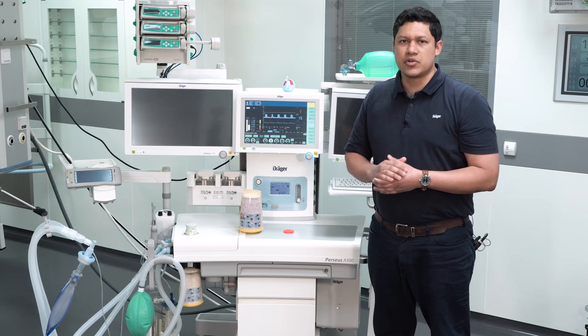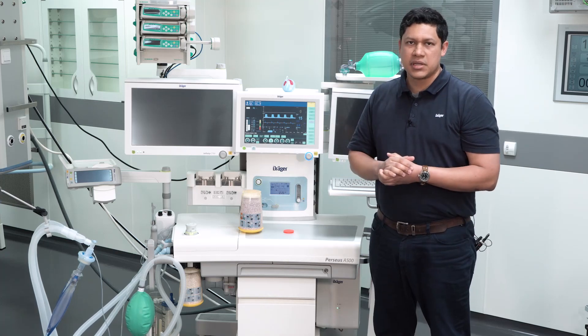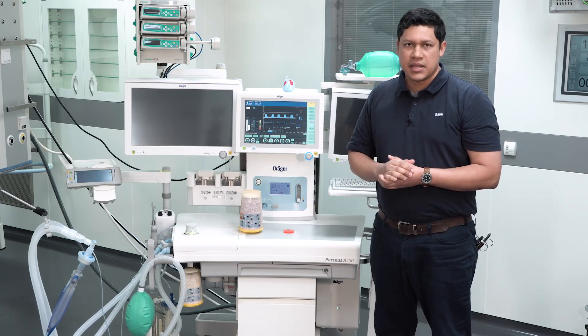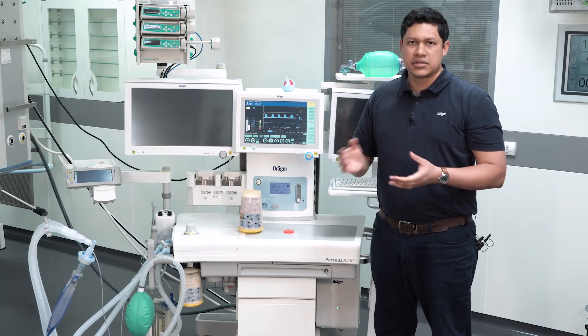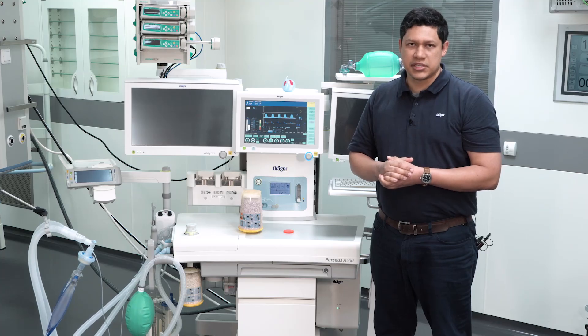In the case you have a reusable cartridge, please get instructed by an experienced anesthesia colleague.